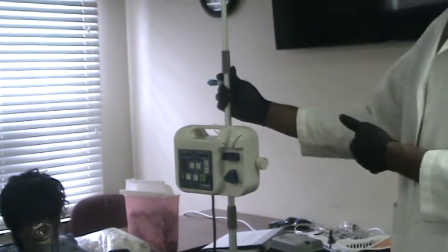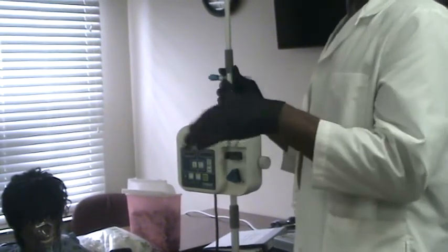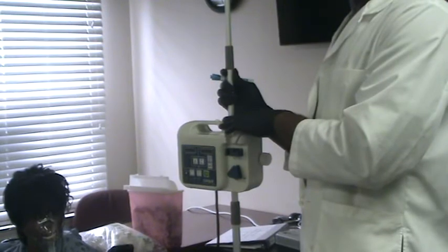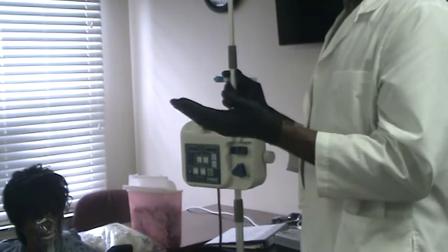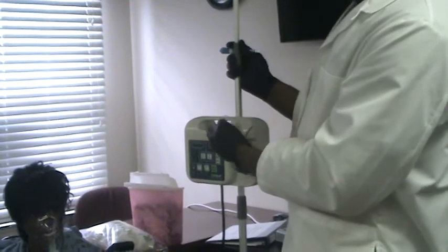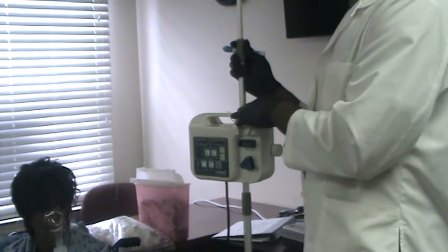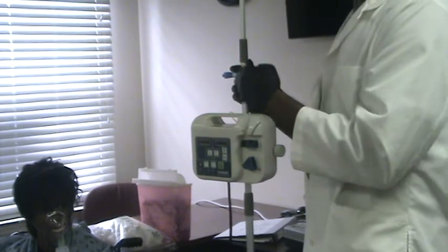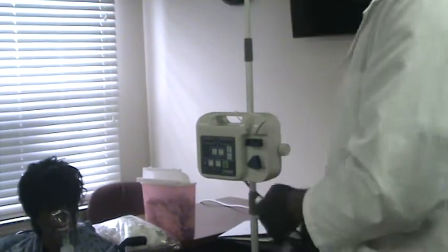So why not? If you're not sure, or you've forgotten, or even if you remember but you just want them to show you again to be sure, just ask the family member to show you how to operate the machine. It's like driving a car. Once you know how to drive one car, you can drive another type of car. Like I said, you only need to know how to program the machine. Sometimes it's already programmed from the hospital, or the company that delivered the machine already set it up. So turn it on and plug it in.